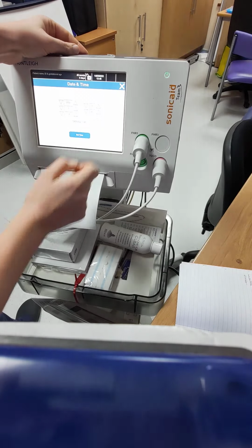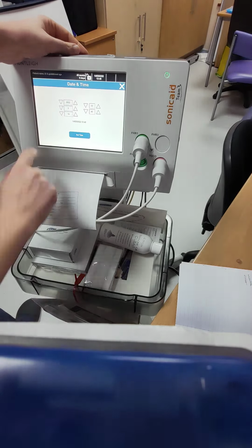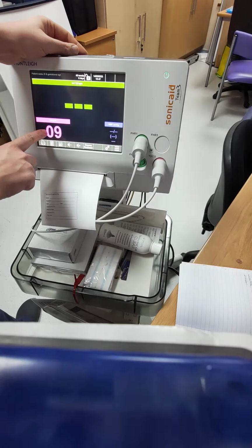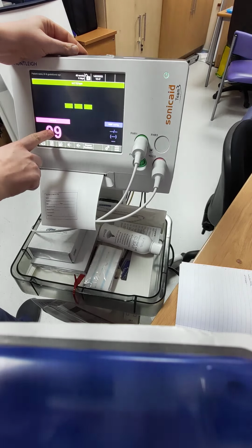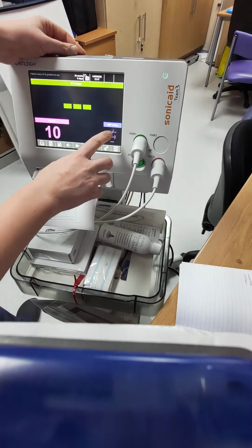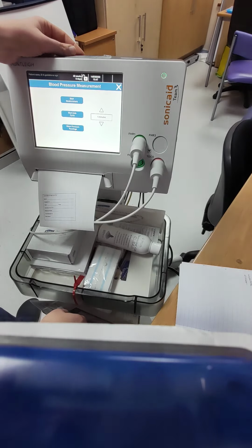So just to change the time and date, you just again hold it down and then fill in with what you need to do and then set the time. Obviously here is your fetal heart rate, and then you've got the TOCO. To manually set it to 0, again you just hold it down. This one here, hold it down, that's for when you've got your BP measurements.